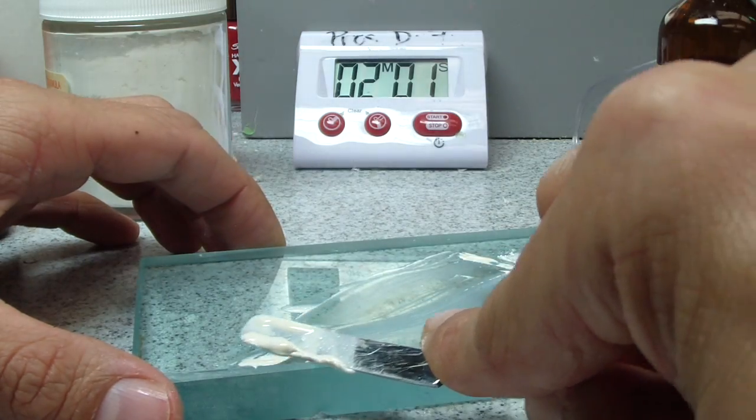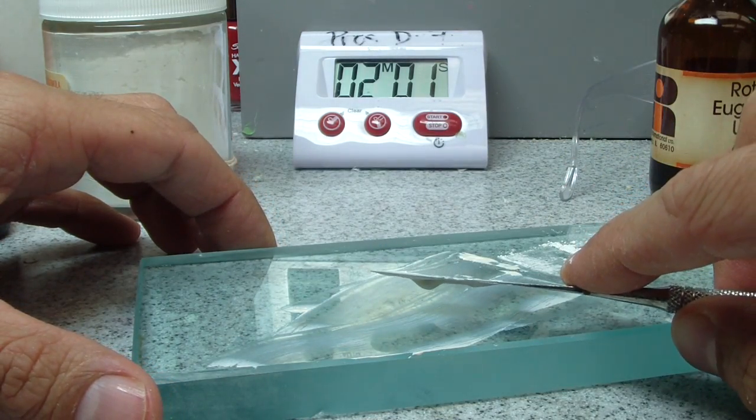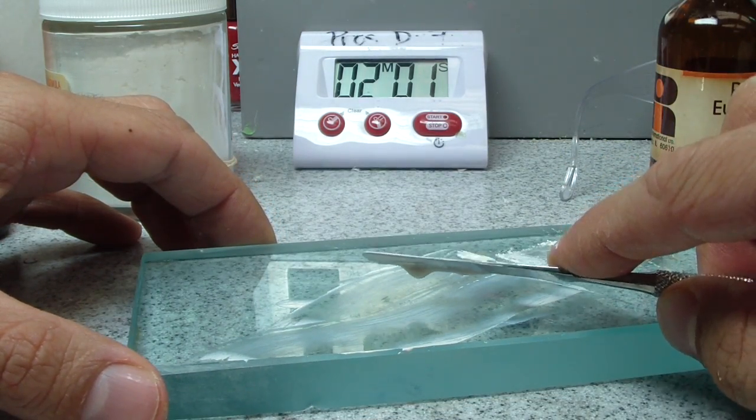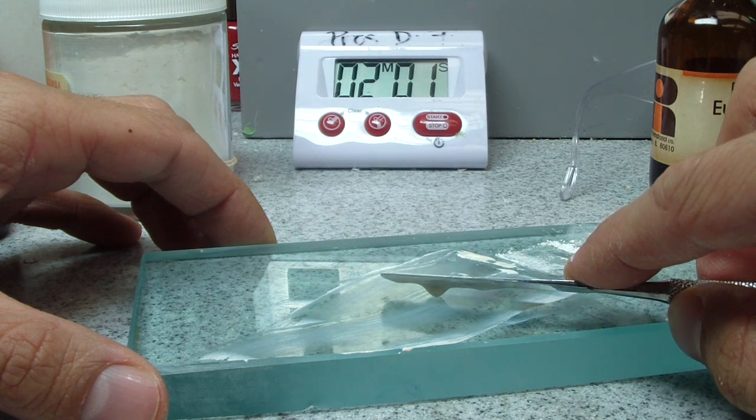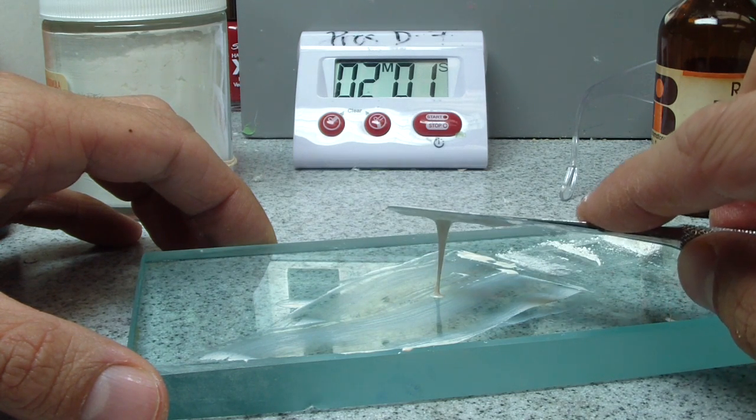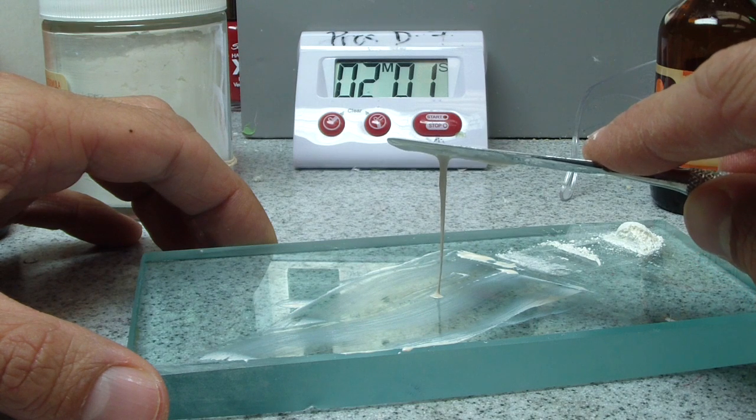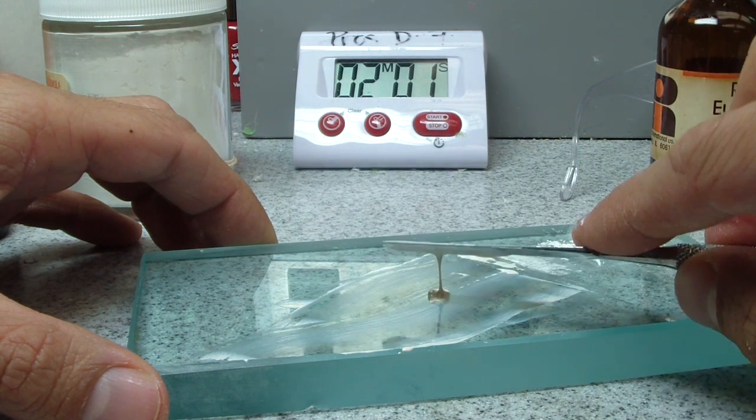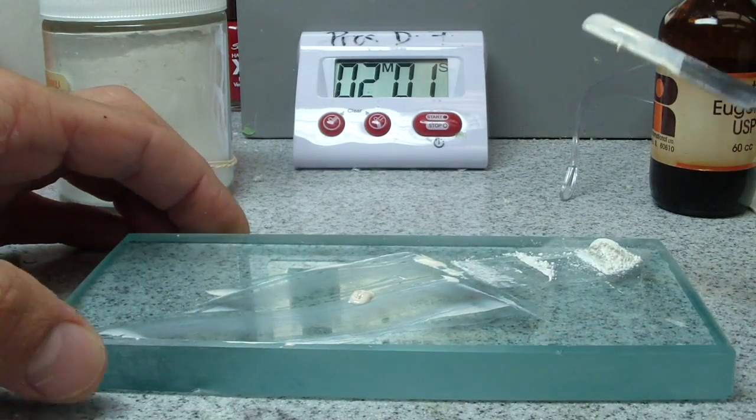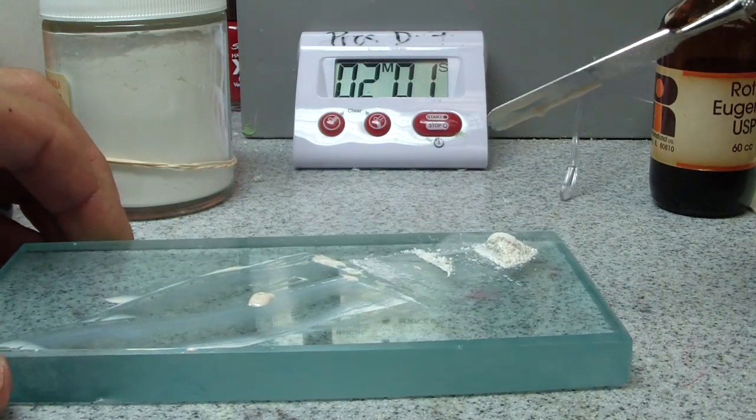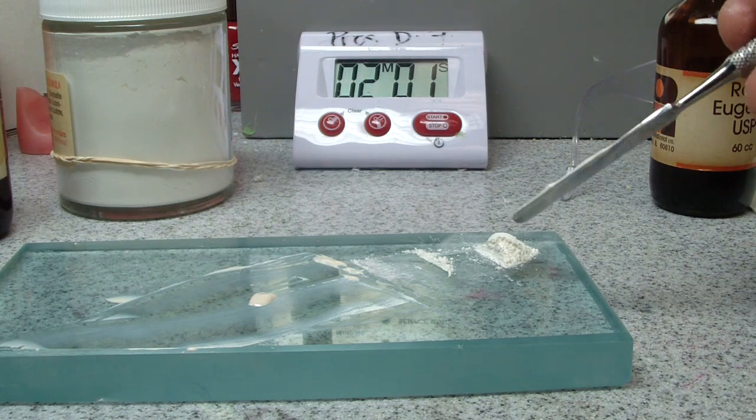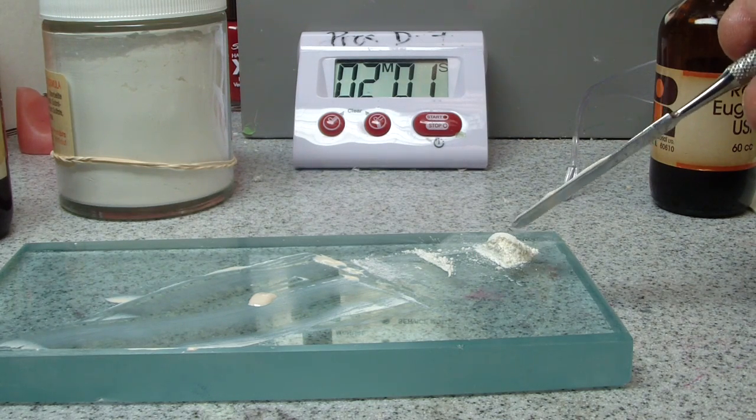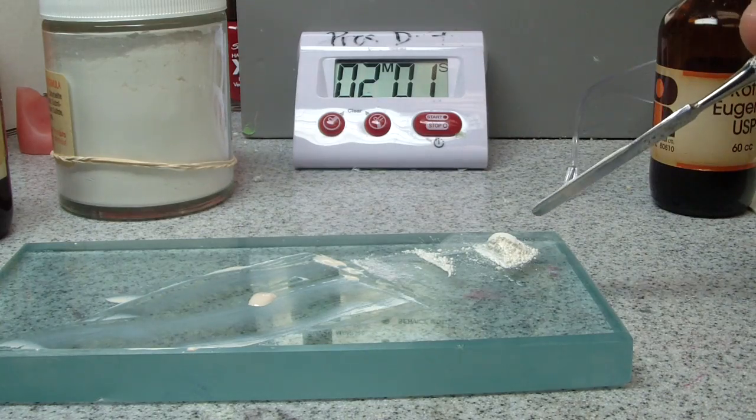And again, let's just check. I mean, some folks say that Roth never sets. Some, the bottom, the webpage says it sets in 4 to 12 hours. And there's our nice string. My dental materials professor would be super happy if I was able to pull it off. So actually if we look at—I mean, this is just a tabletop one shot—it really wasn't one-to-one. It was more like two drops to one of powder.